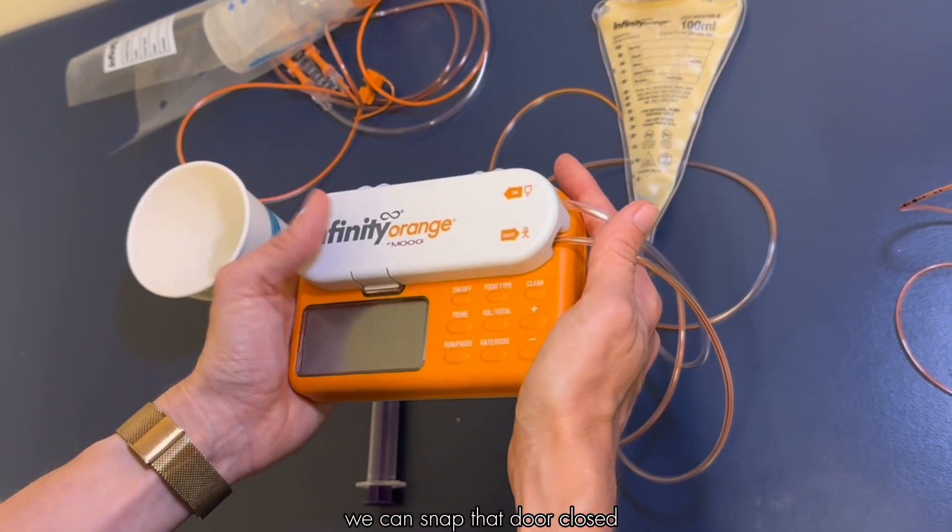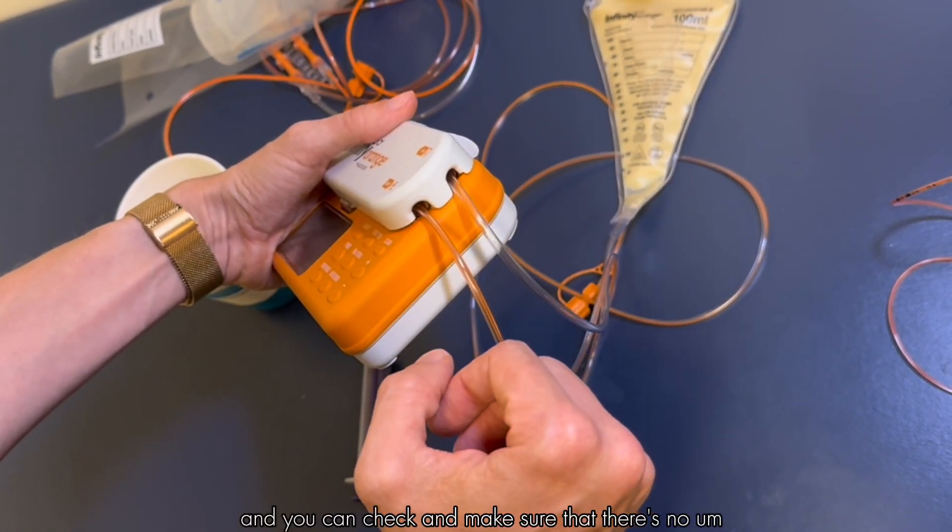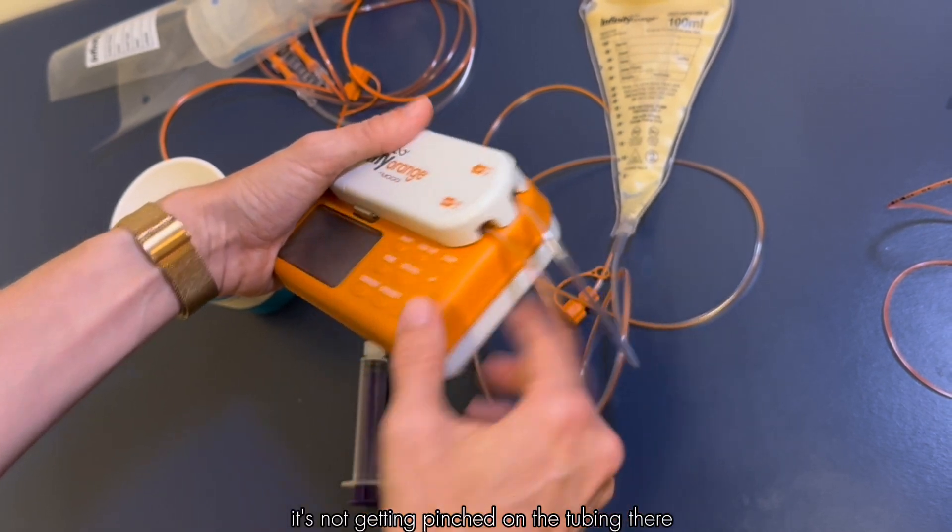We can snap that door closed and you can check and make sure that it's not getting pinched on the tubing there.